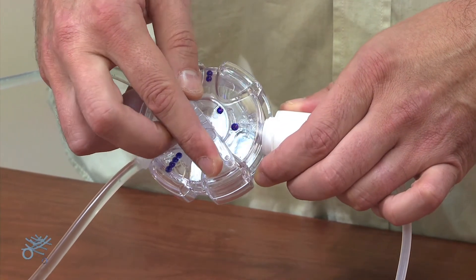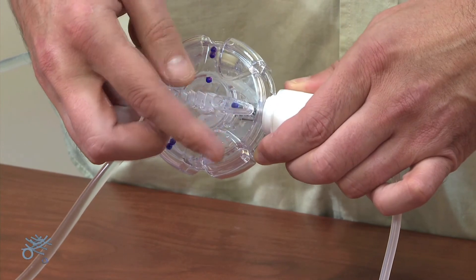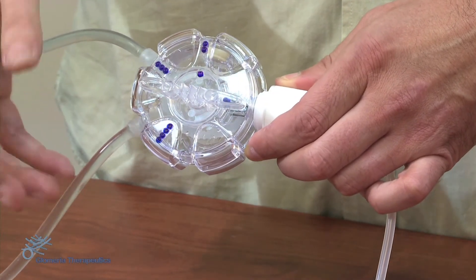We now turn the valve for its first rotation until we reach the position denoted by two blue circles.